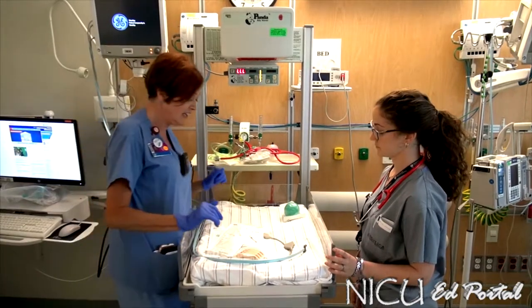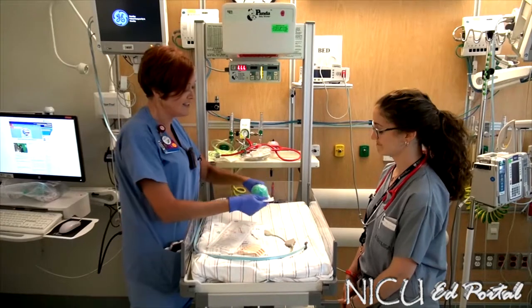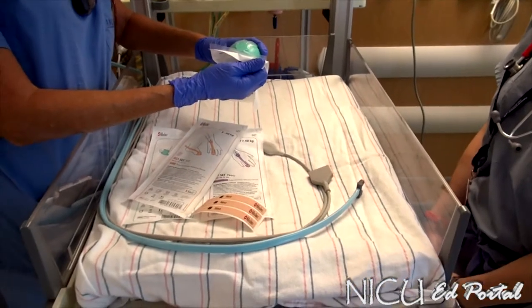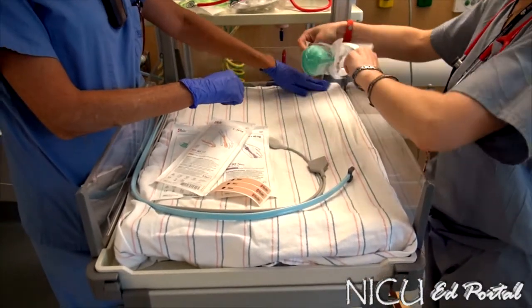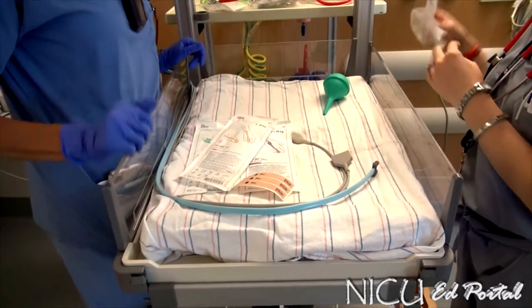The second thing is airway — always. This is your trusted friend: your bulb syringe. What you will do is open it and have it ready before the baby even comes out. Open that up and put it to one side. I generally keep them at the top of the bed — right there and ready to go.